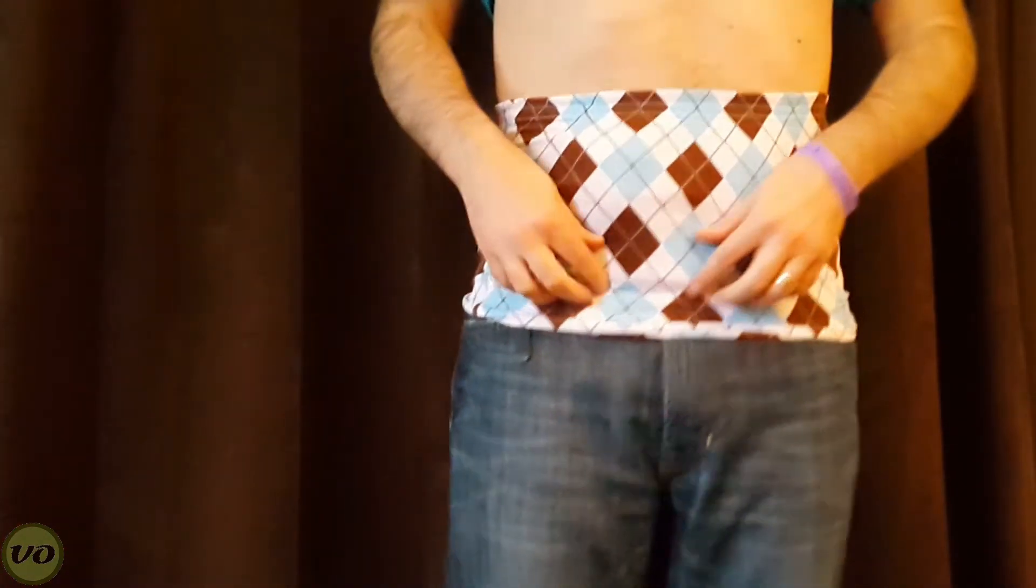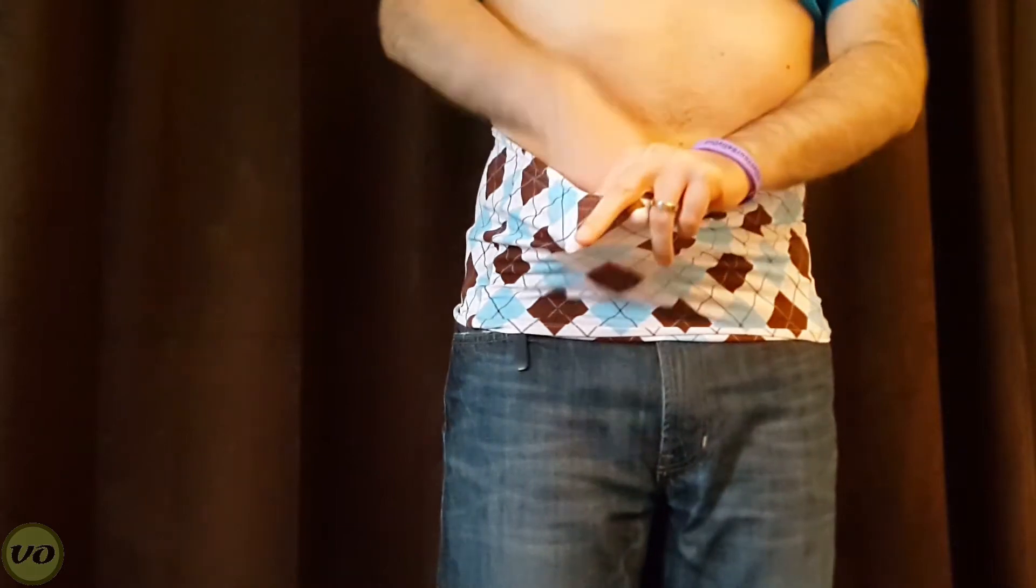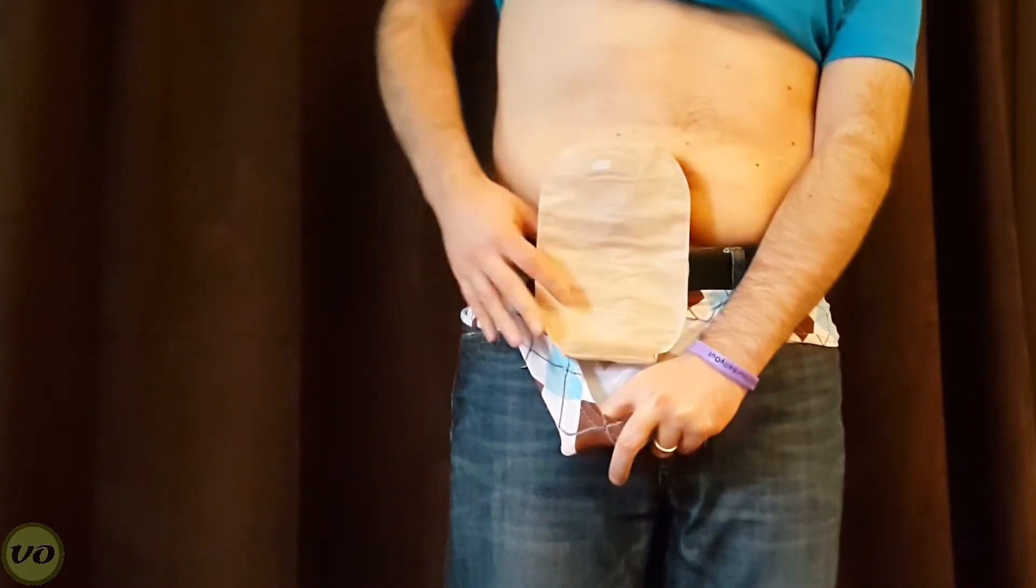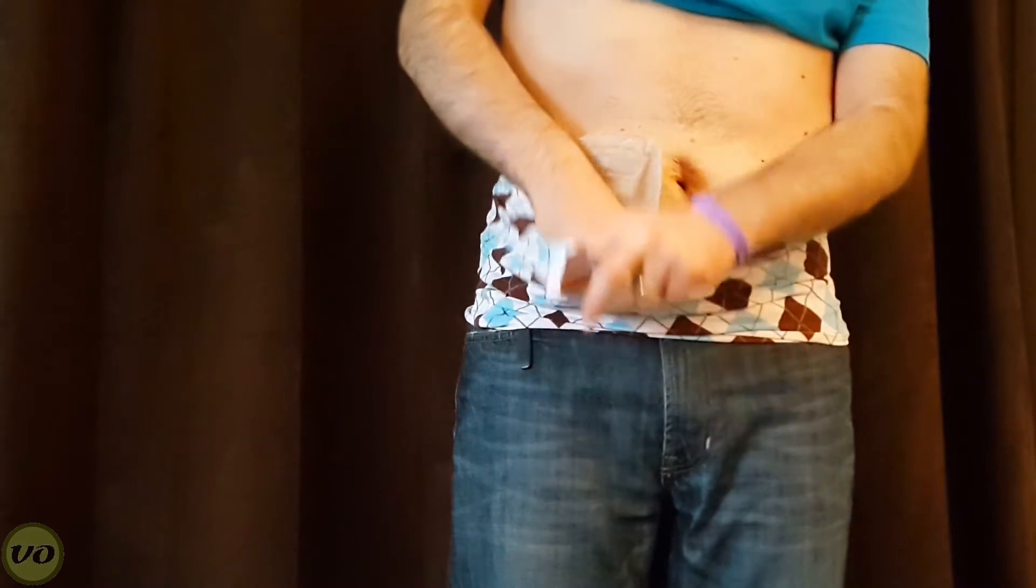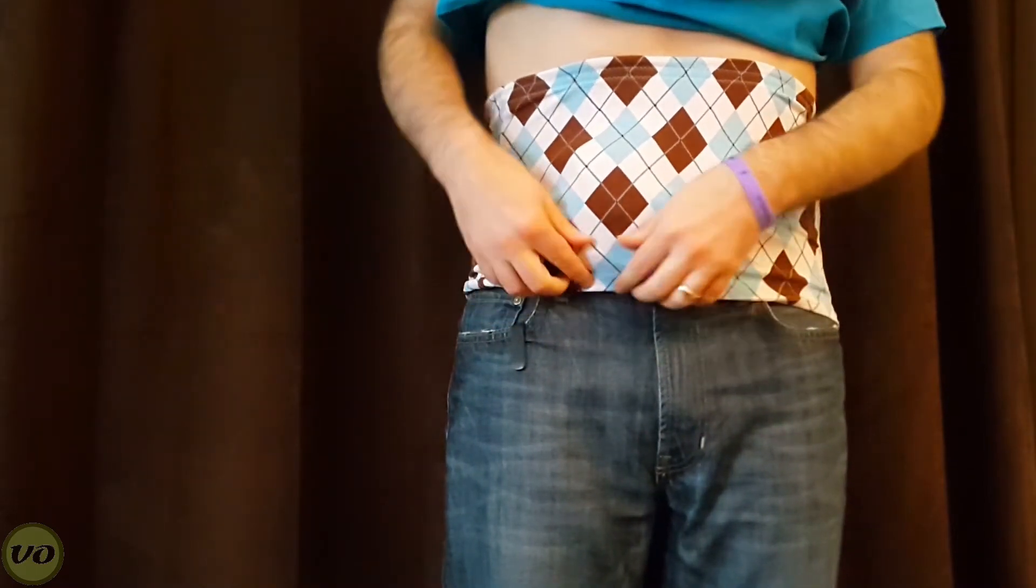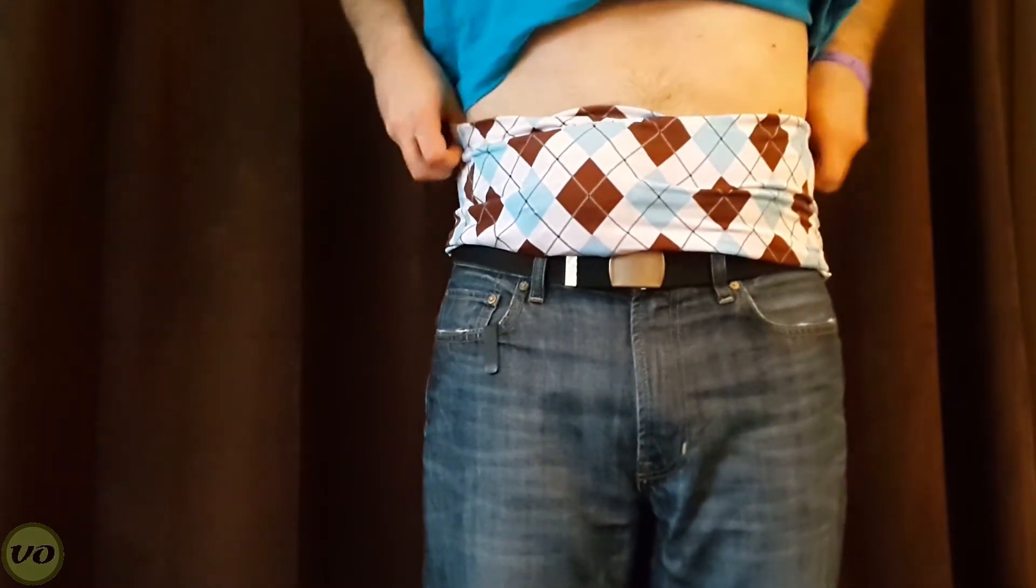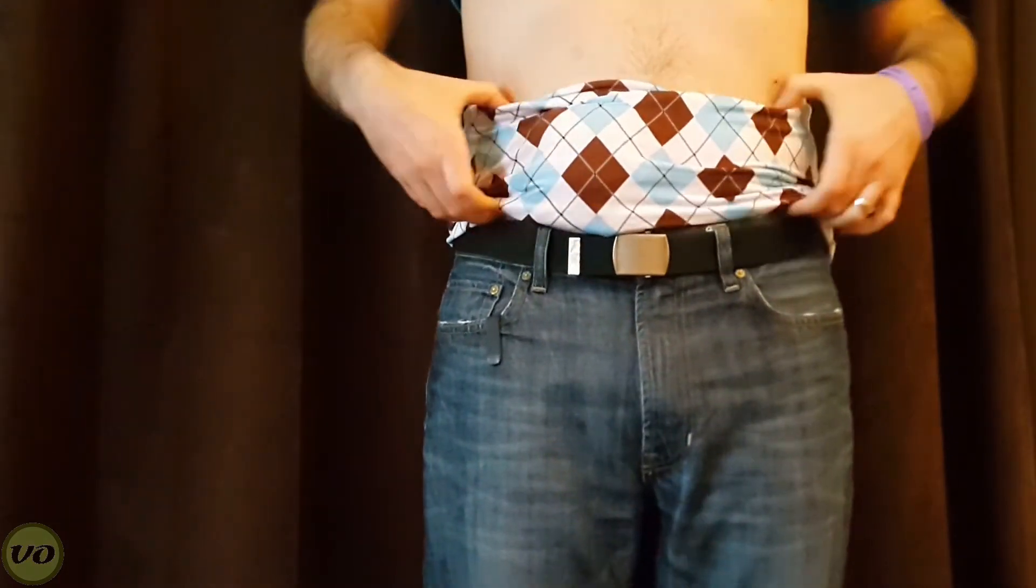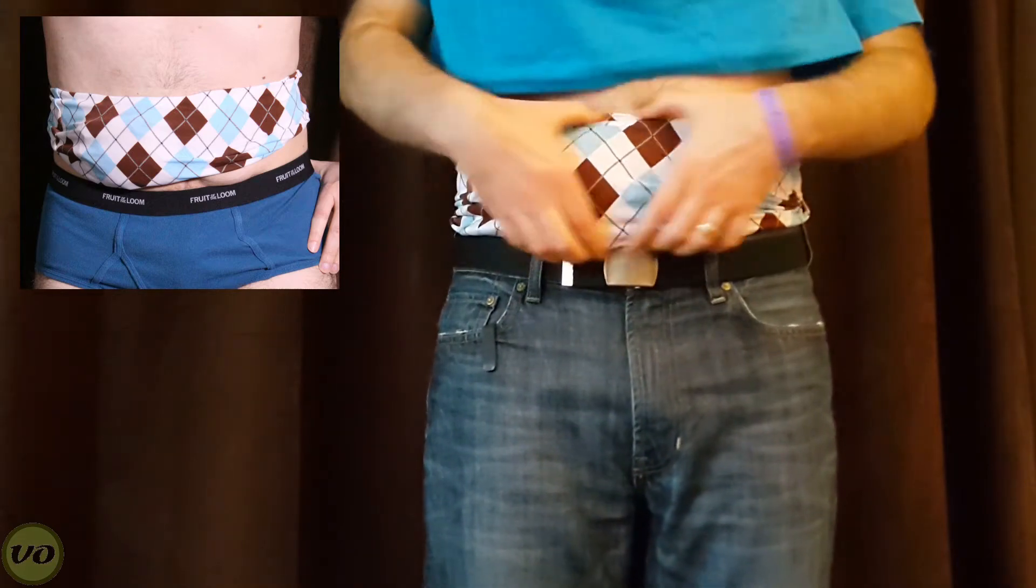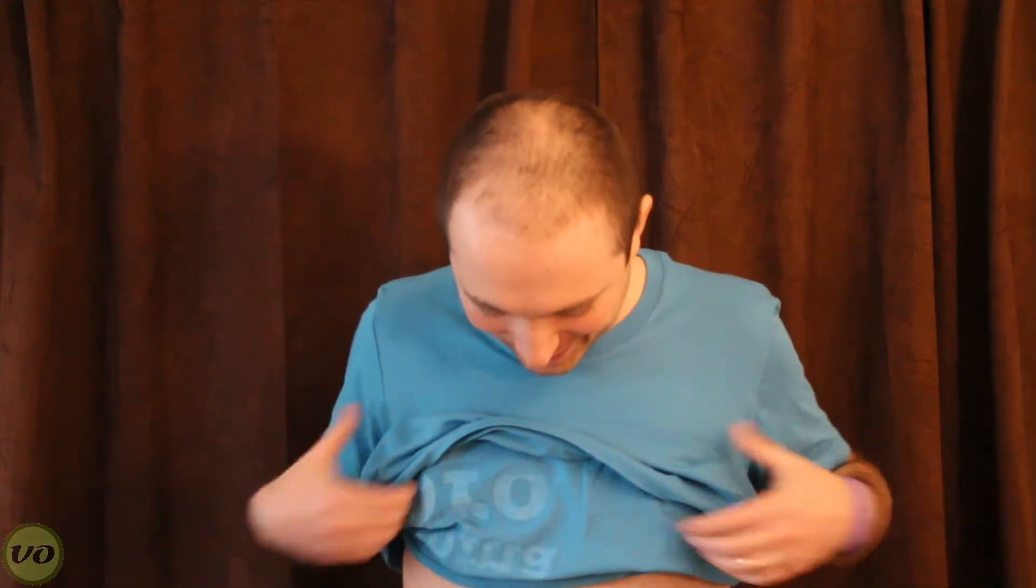Now, if you're going to be using this for intimacy or anything where you really need to be super small, what I tend to do is I'll fold the bag in half, either up or down. It really doesn't matter too much. But I'll fold it in half and then I'll bring this up as much as I can and then tuck it under there. Okay, so that gives a very low profile, it just makes it much smaller, much more compact. And that's really great, especially for intimacy, because then it kind of keeps stuff away from the action.